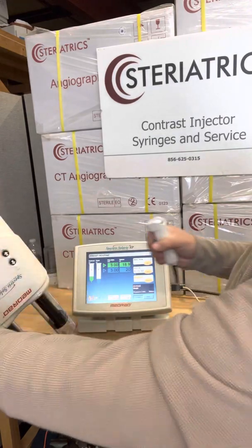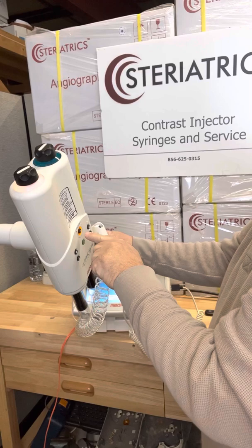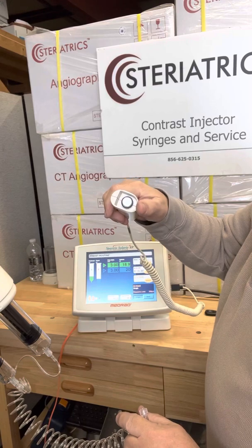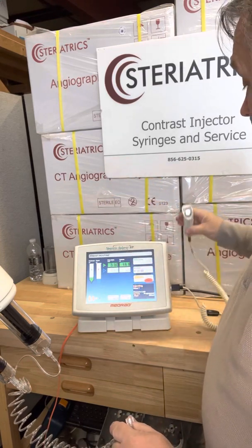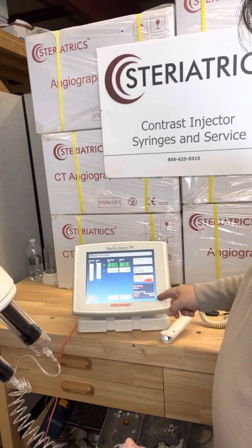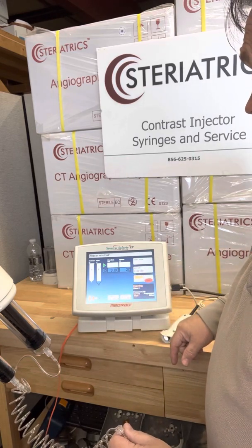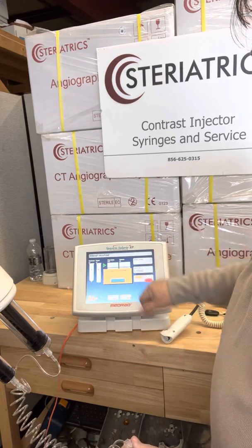Now we're all set — armed. We have lights on on our head over here. That's our enable and check for air light. You'll notice our actual button is blinking too. So we want to start it — press it once. And now it's injecting. It's flowing, no problem. The little bit of sound you heard was actually the check valve being pushed with air. And then when we're all said and done, injection complete.